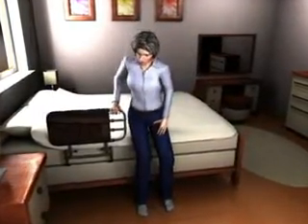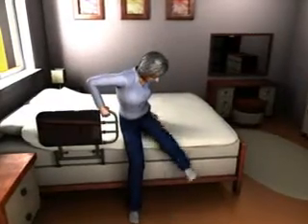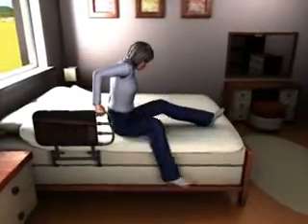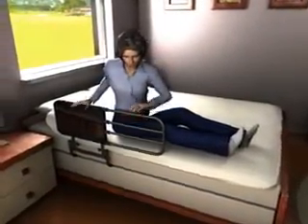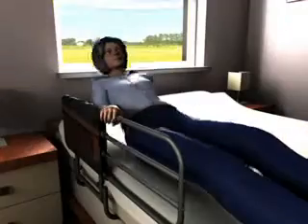We haven't tested it yet on circular beds or beds of nails. It can support up to 300 pounds and is the only bedrail in the world that can extend from 26 inches to 34 inches to 42 inches after installed.